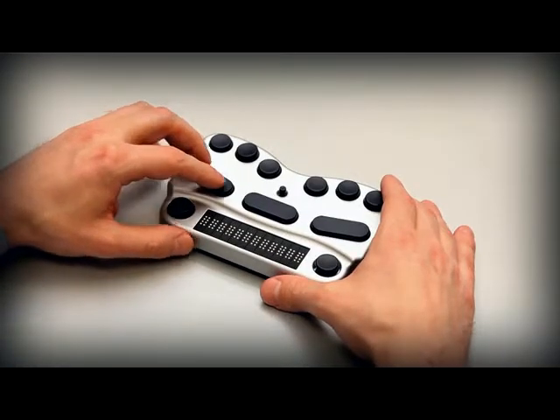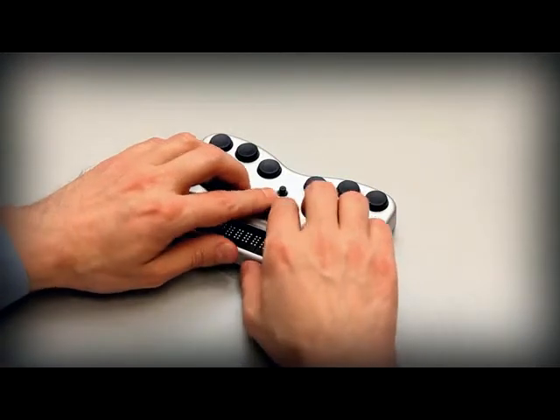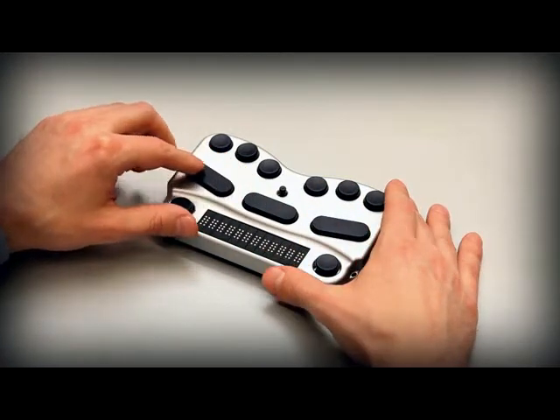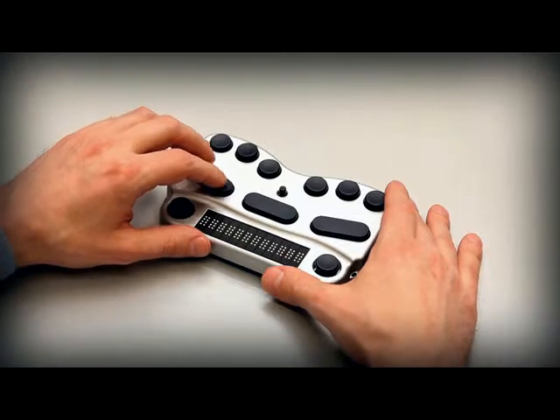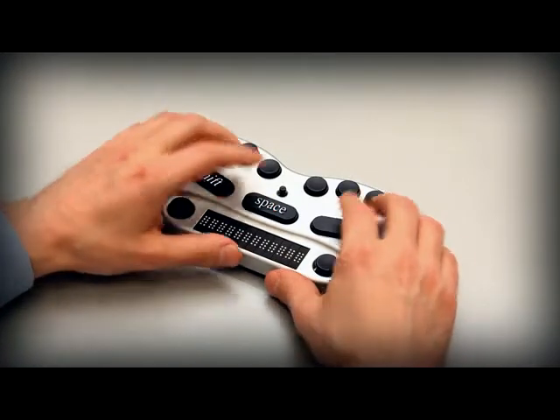Beneath the Braille keys and the joystick on the side nearest the user there are three long keys in a row. From left to right they are shift, space and control.